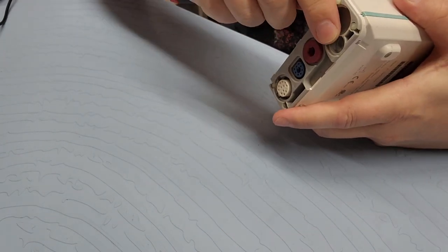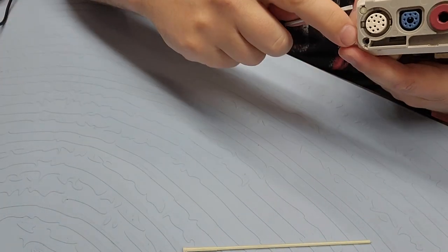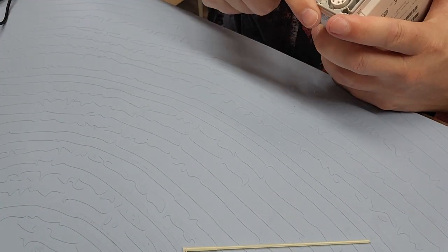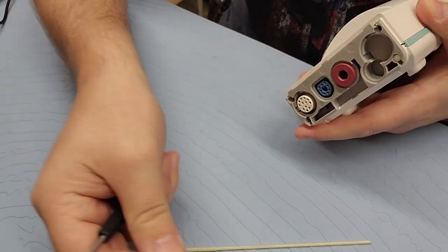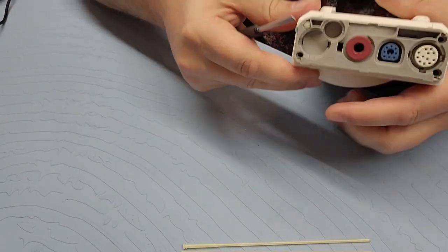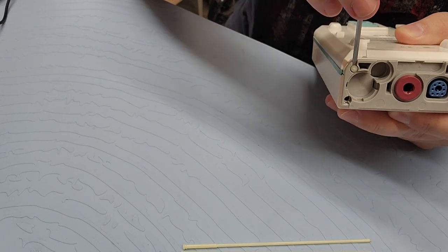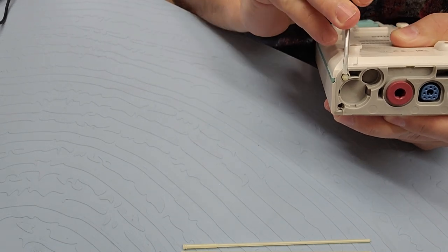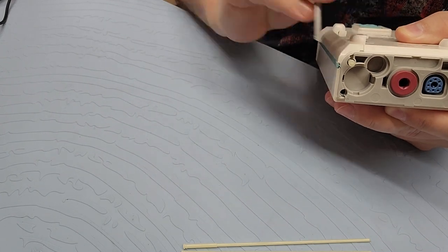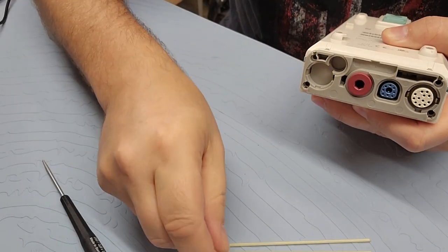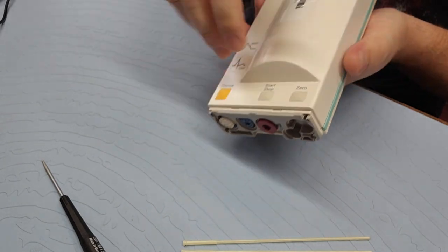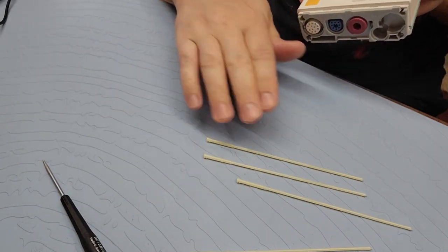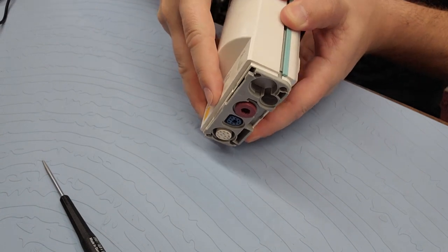There we go. I should use one size smaller of a flat blade screwdriver to get in there a little bit better. And I've got one more. Just genius. Whoever designed this, if you guys know who designed it, let me know. I would commend them. And believe it or not, those four rods right here are what hold this bad boy together.